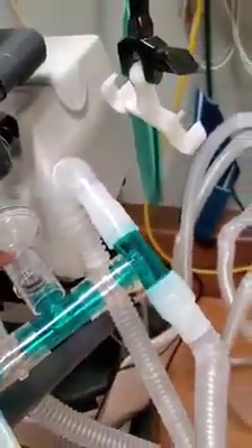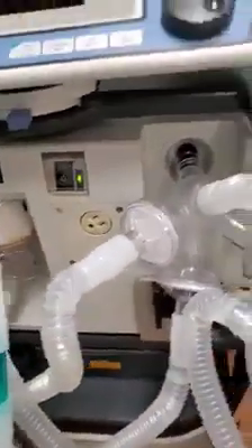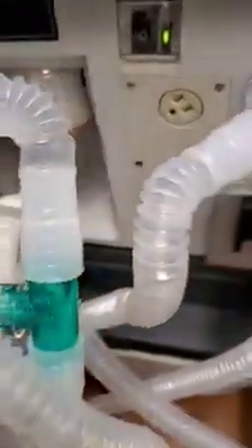So this one outlet is equal to four, and then five, six, seven patients are connected to this. On the exhalation part, again the similar thing — we have a different color for this so that we can separate them out. These are the filters that we have placed in. Again, you're seeing the T-pieces that we have connected with two extra ones and two on this side.